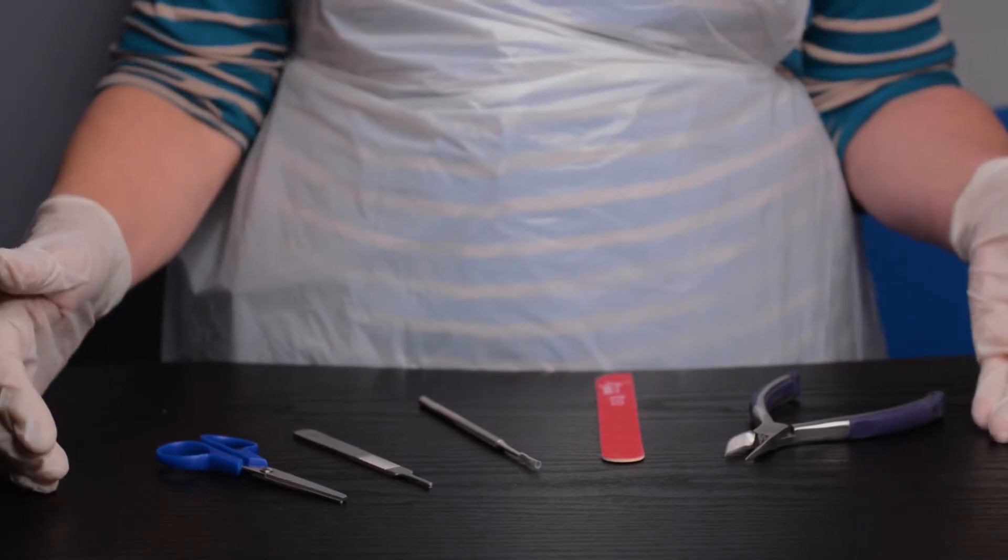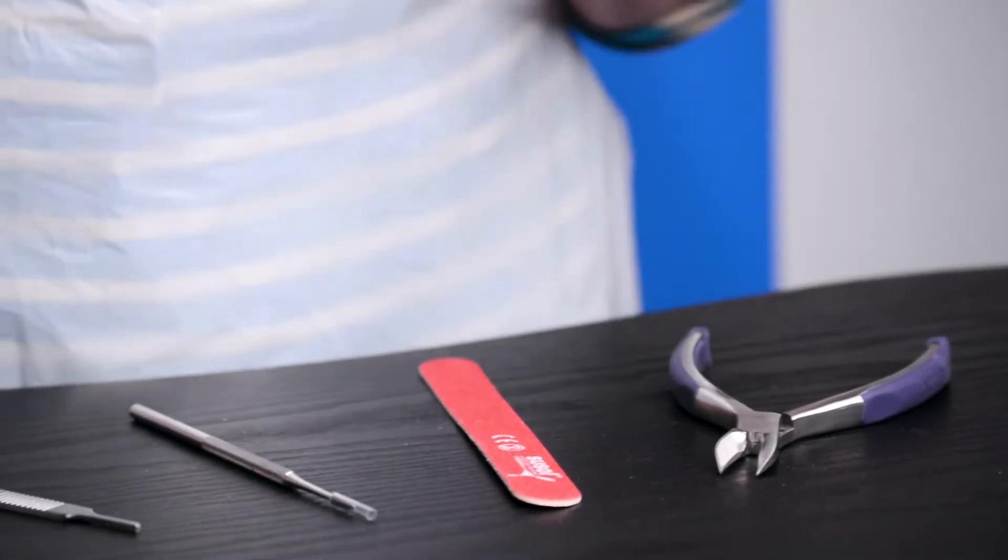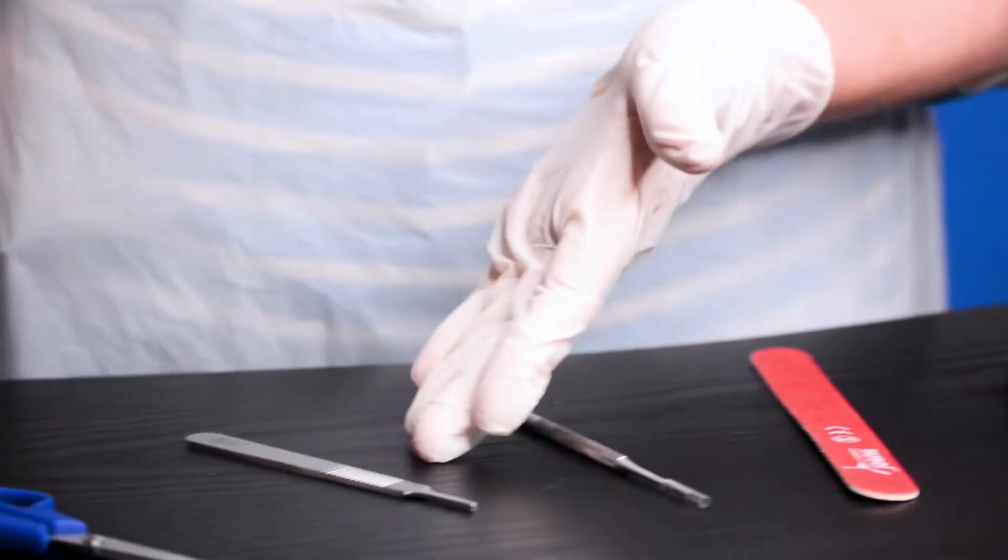This podiatry set contains a general curved nipper, an emery board, a black file, a number three scalpel handle, and dressing scissors.